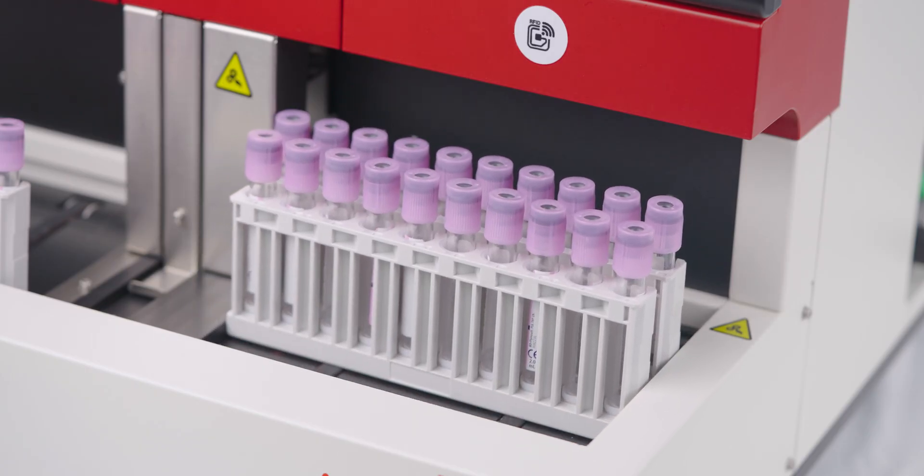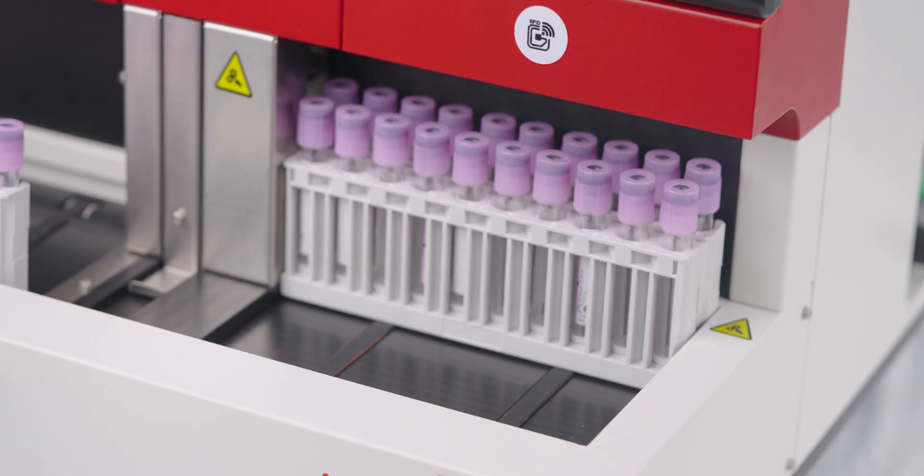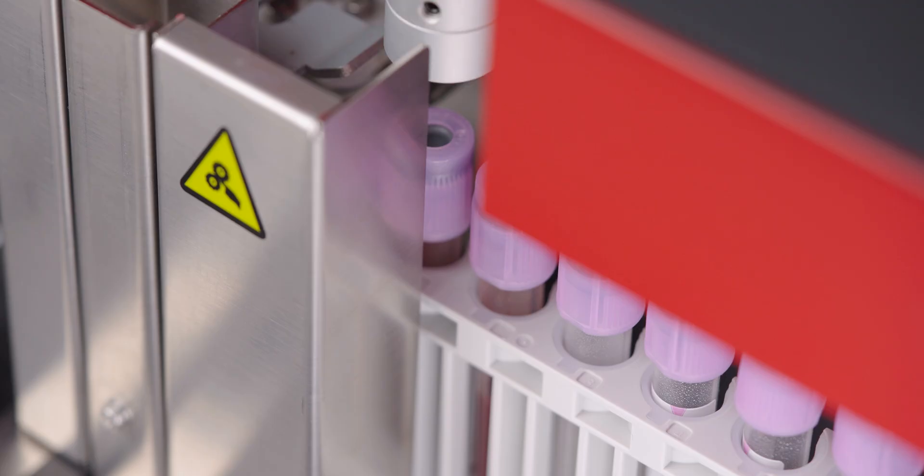Operation is effortless with fully automated analysis, an internal barcode scanner and automatic sample stirring for smooth, hassle-free performance.